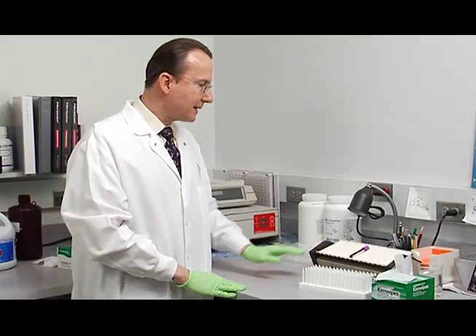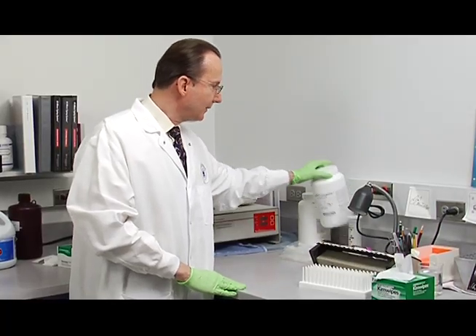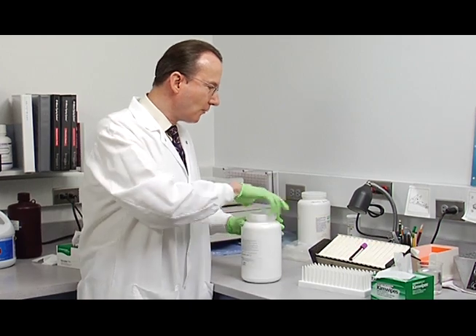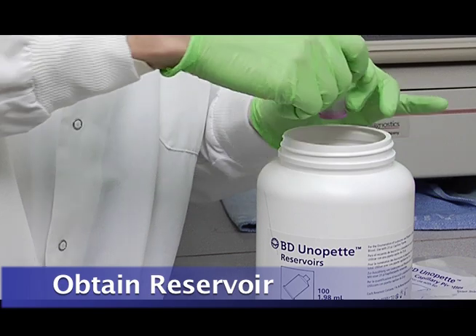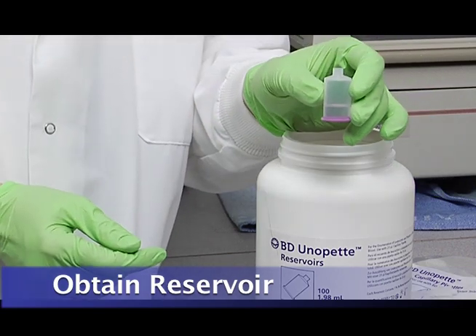After you have completed mixing for 10 minutes, then you'll obtain your reservoir and prepare it for dilution of your specimen. You'll take out one reservoir.